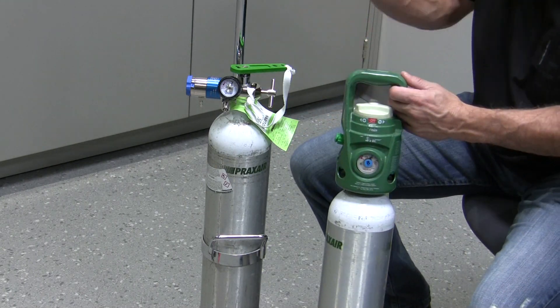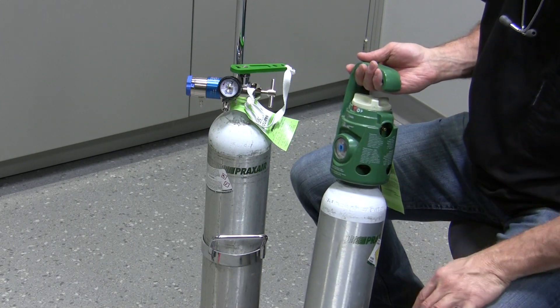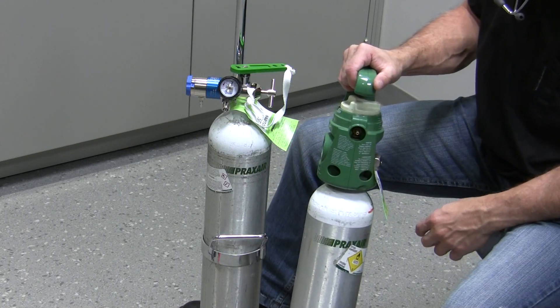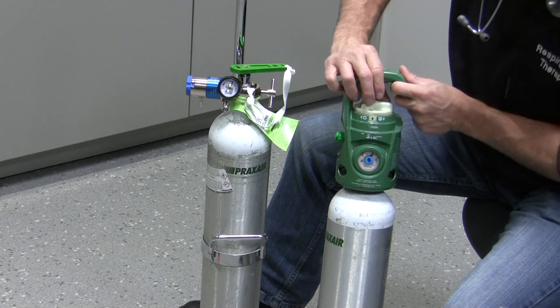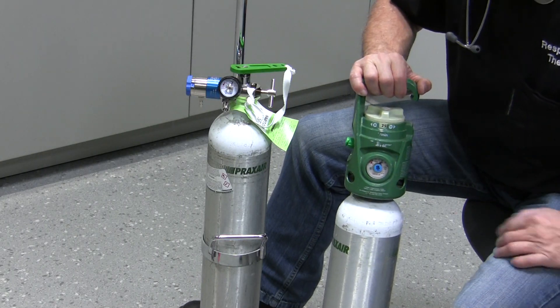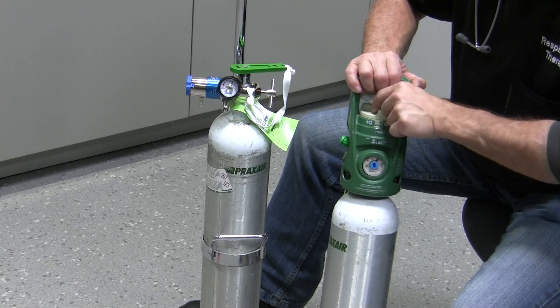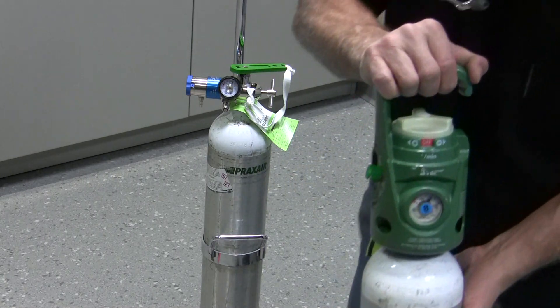All you'd have to do is make sure the cylinder is held safely in a cart, then simply attach your oxygen tubing here to deliver gas flow to your patient via nasal cannula, simple mask, or if you needed to bag your patient using a manual resuscitator. When we turn it on, it's set to 25 liters a minute, so the gas is coming out at 25 liters a minute — fast enough to hook up to a manual resuscitator and manually ventilate the patient with oxygen. Turning it counterclockwise brings the flow rate down until the tank shuts off, indicated by a red 'off' display.